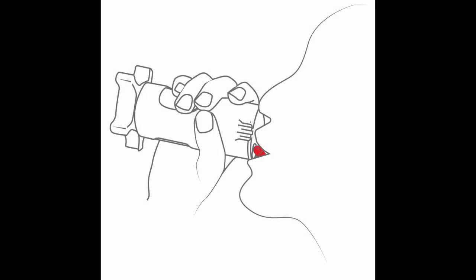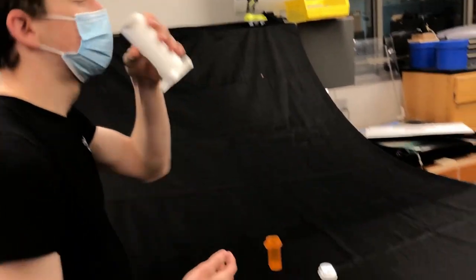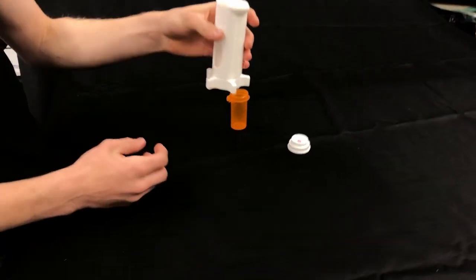The pill dispenser can be brought to the user's mouth similar to a drinking glass. The pill should then slide out of the pill dispenser and into the user's mouth.